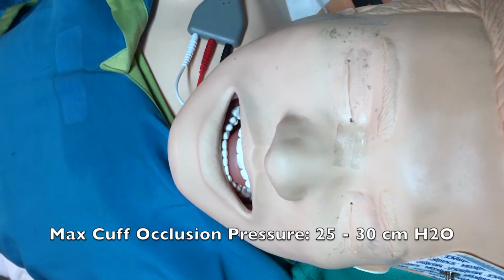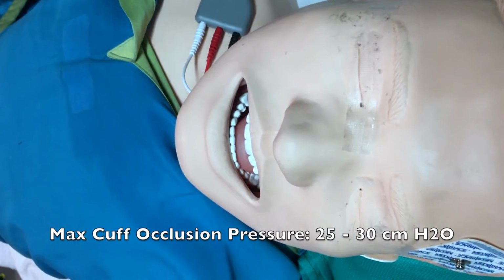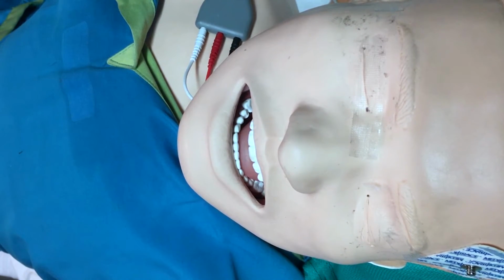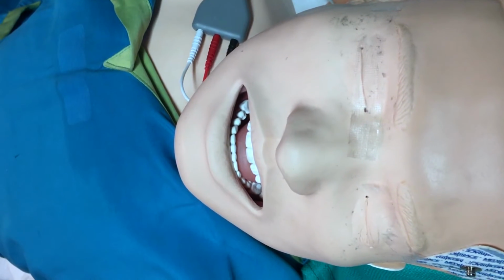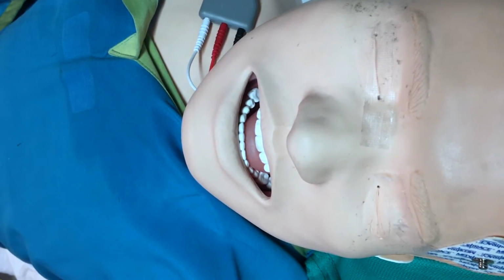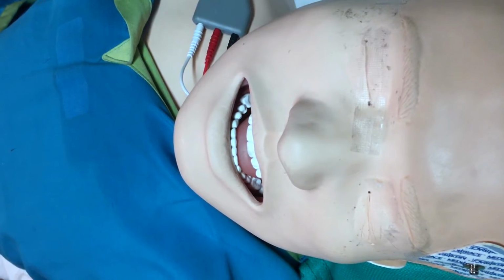Maximum occlusion pressure is 25 to 30 centimeters of water. And then there's an acronym called SMELLS that we use to identify if we're in the right place and if proper intubation has occurred. I'll talk about that in a bit.